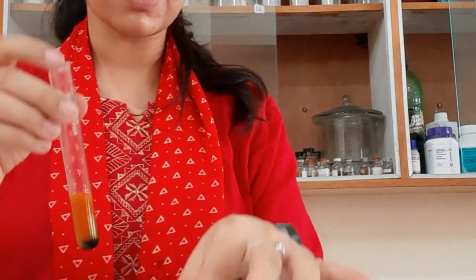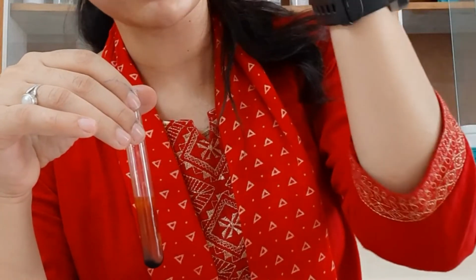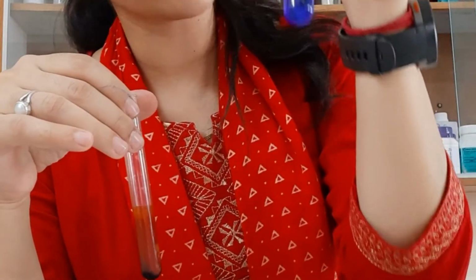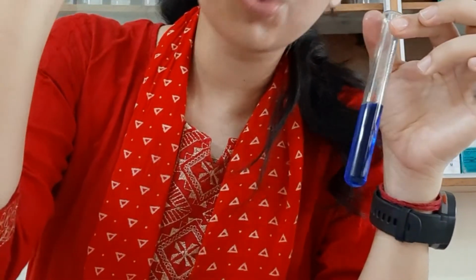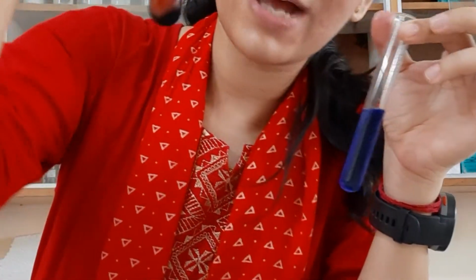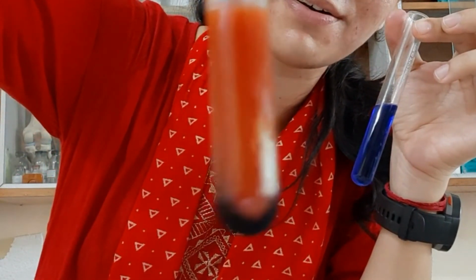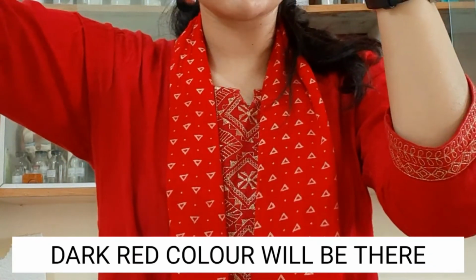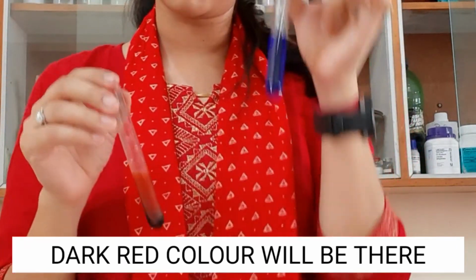The second one was our Fehling's solution. When there is no glucose in your urine, it will not change its color. This is our Fehling's test, where it will not change its color. But now, because I have added glucose in this sample, as you can see, the color has changed to red. Look at the changes in the color. So this is with glucose and this sample is without glucose.